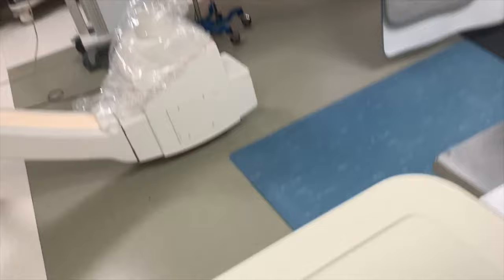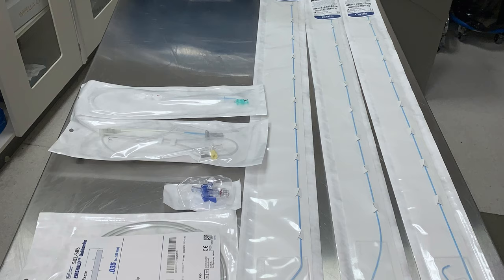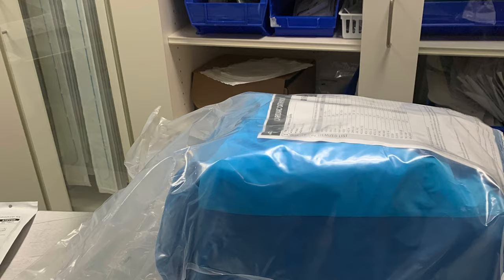The JL is used to visualize the left coronary system, which contains your LAD and circumflex. The JR is used to visualize the right coronary artery system, your RCA. And the pigtail is used to measure your heart function, or ventricular function, or ejection fraction.